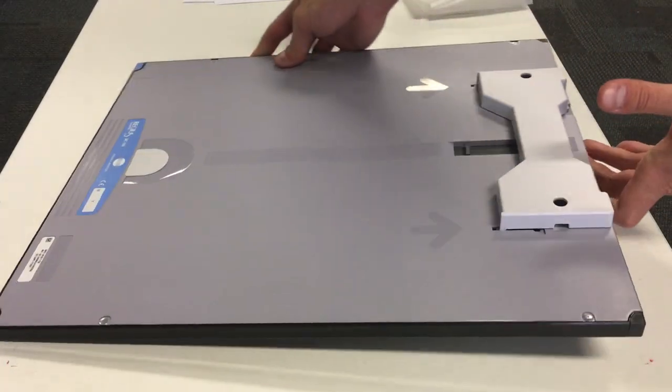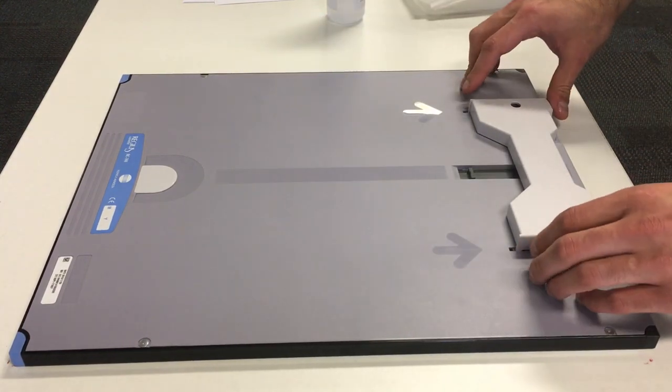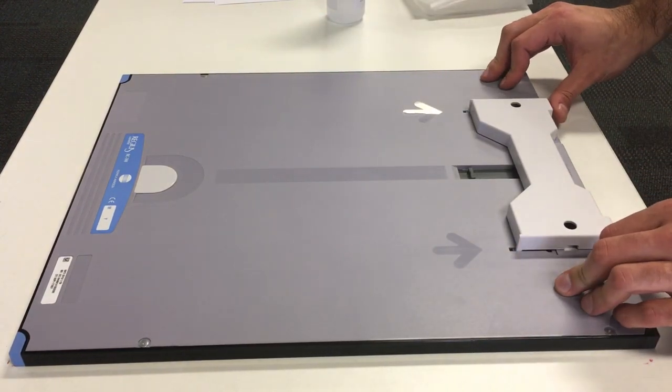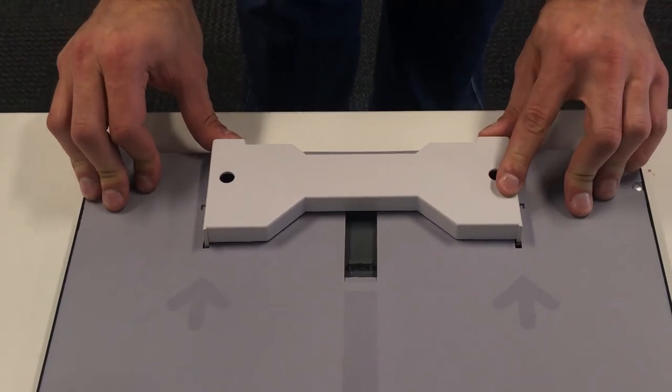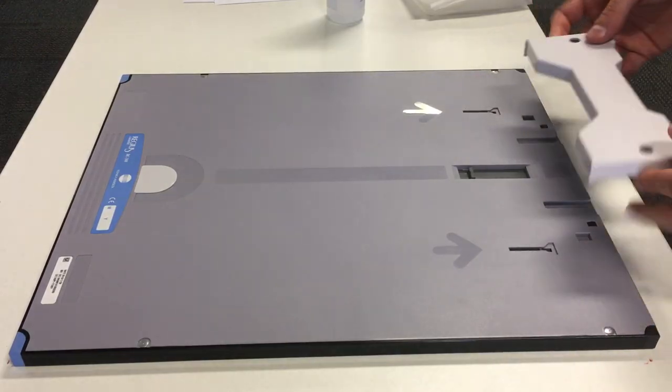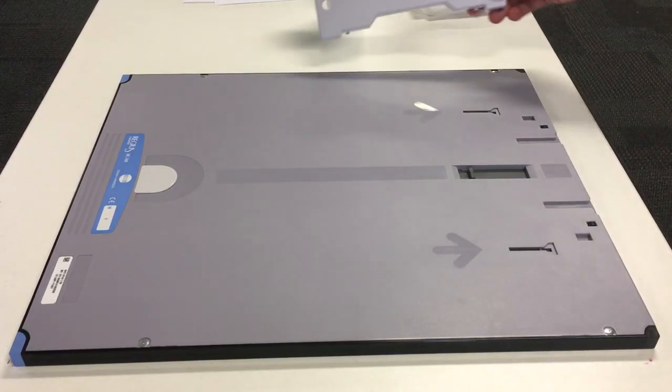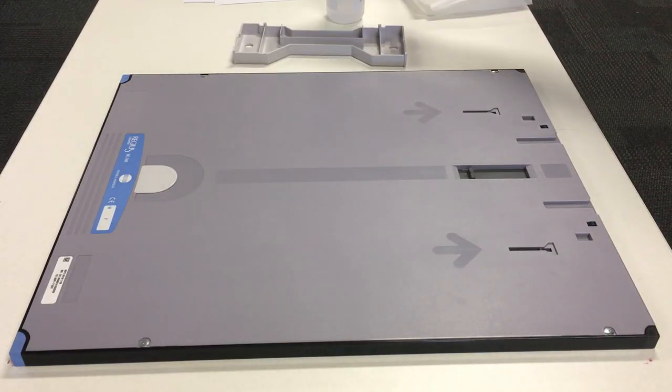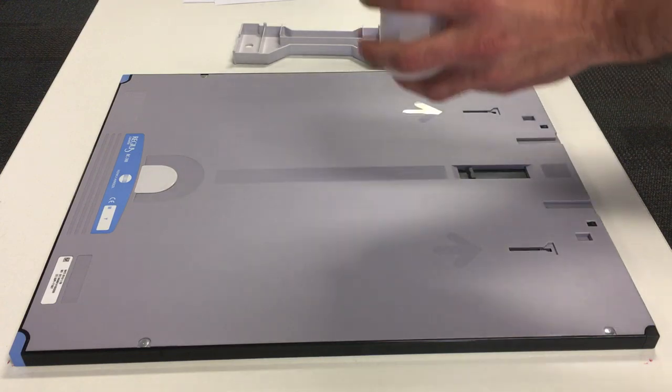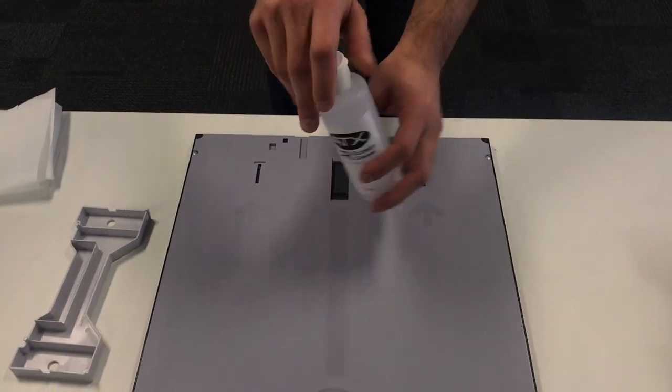So now we can take the tool out. So first you start from the bottom. Bottom up. And take it out that way. And don't forget to close this while you're working on it. You can just trip on it and make it a little bit of a mess.